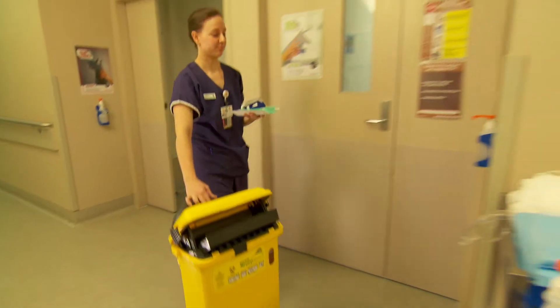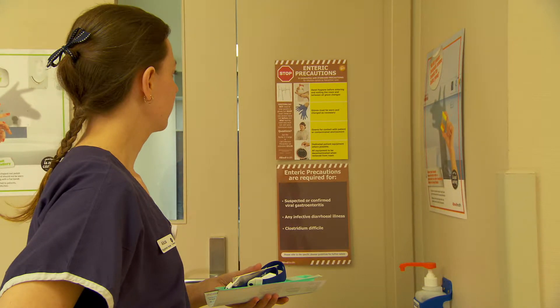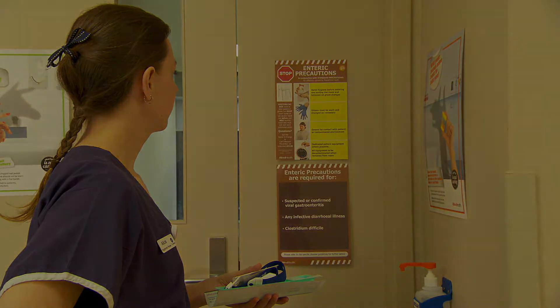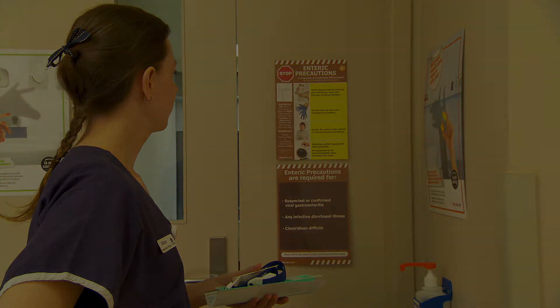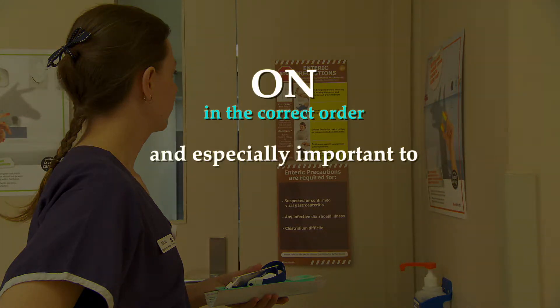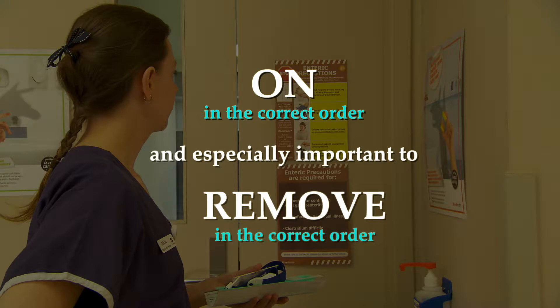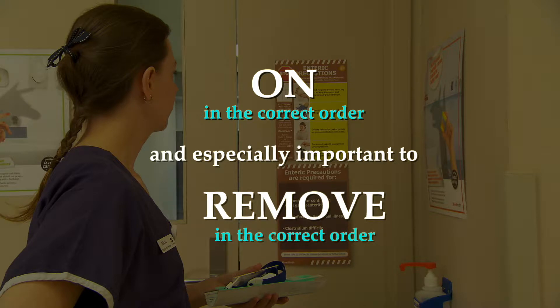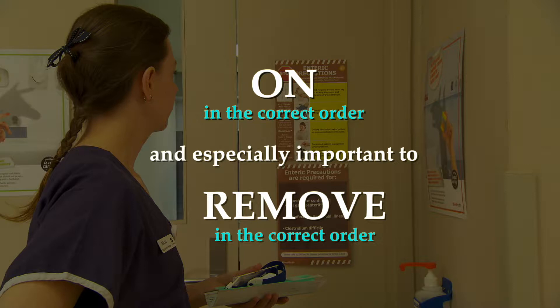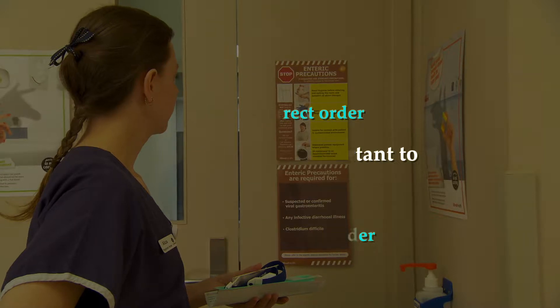Alicia arrives outside Jane's room and notes the specific isolation signage. It is important to put the PPE on in the correct order, and especially important to remove it in the correct order, so that you reduce the risk of contaminating oneself, your colleagues, other patients, and the clinical environment.